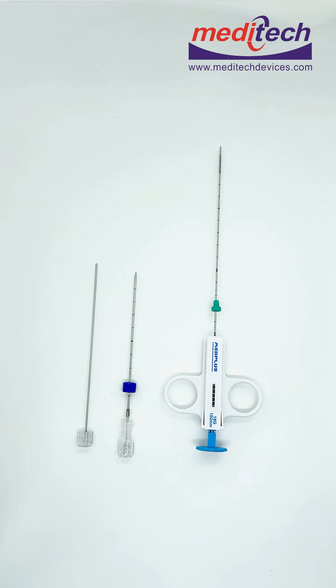Manufactured by Meditech, it is a semi-automatic biopsy instrument used for taking soft tissue biopsies of kidney, liver, prostate, lungs, and breast tissue. It is a lightweight semi-automatic biopsy instrument, very ideal for CT guided biopsy procedures.